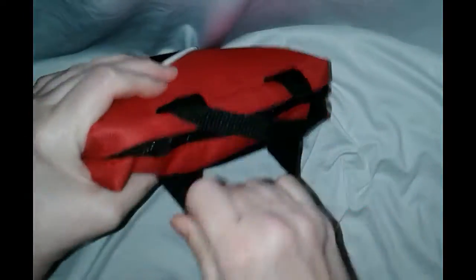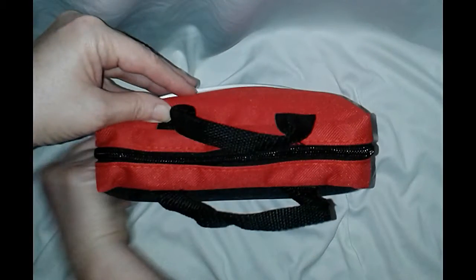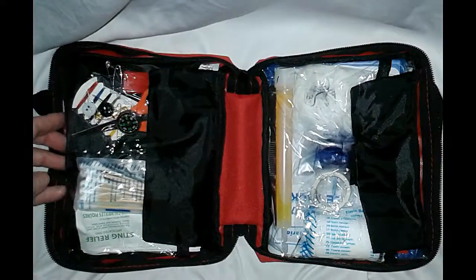The two straps are well put on, so that's going to last. There are two zippers — let's unzip it and see how well it works. Yeah, that looks great. Wow, it is chock full of everything — look at that!